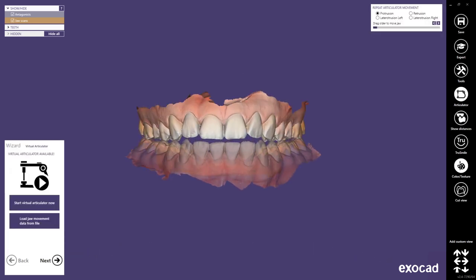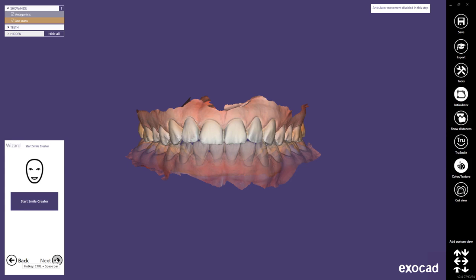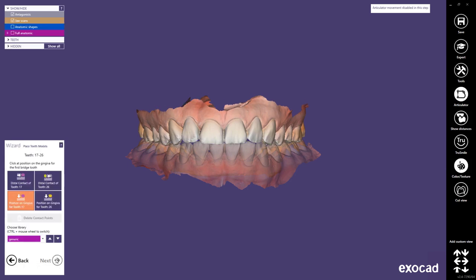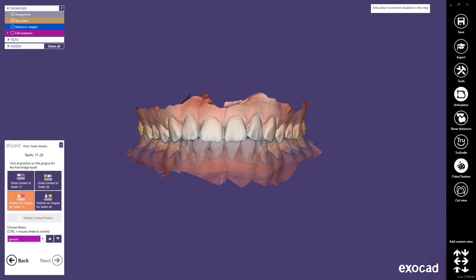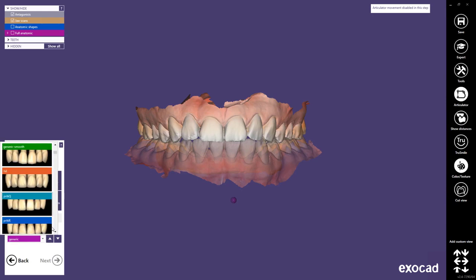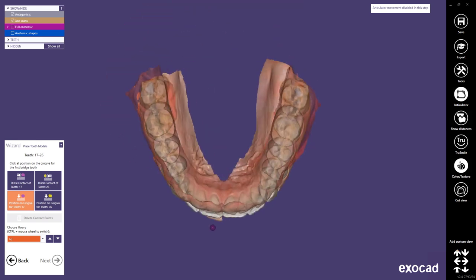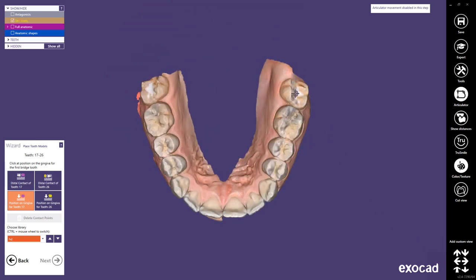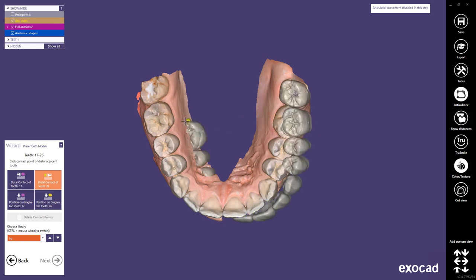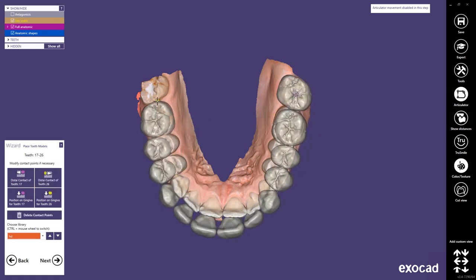You can see that now there's a gap present between the upper and lower jaw. The next step would be the smile creator, but I'm refraining from using it here. In the tooth setup you can select a library that fits your situation — in this case I'm selecting the HD library. Clicking on both of the distal contact points for your tooth arch you set up all of your teeth. You'll notice that tooth 17 is present as well, which was selected as a partial framework tooth.